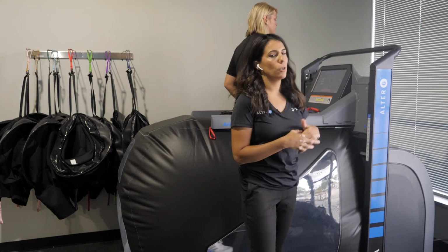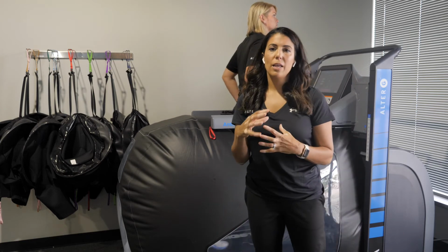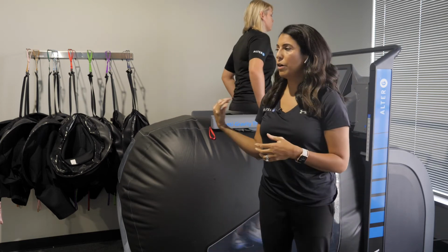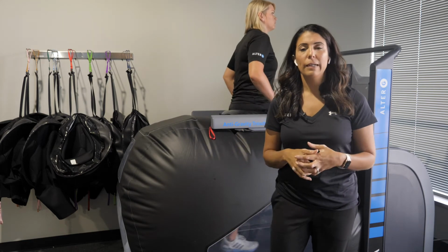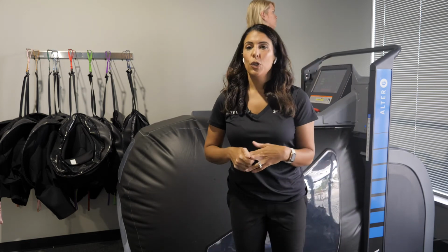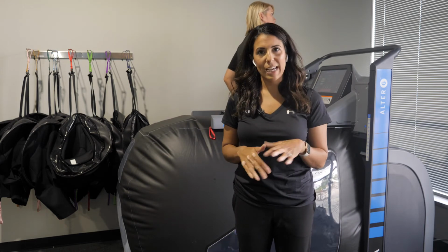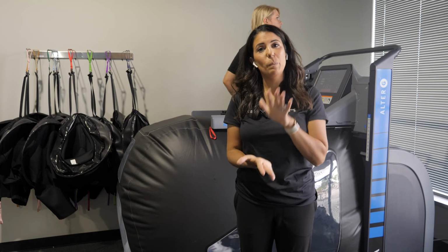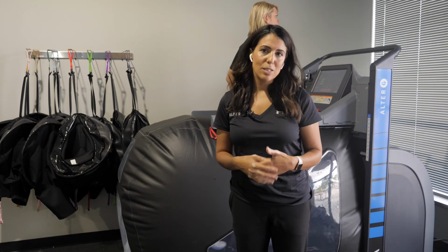We do have a feature called running mode. So if you press running mode, it should help you with the accuracy of the analysis and the metrics coming through. But something to consider is if you are running, you're spending less time in stance, right, and more flight time. So those load cells are only getting a little bit of feedback. So the data is not going to be as accurate as when we're walking.